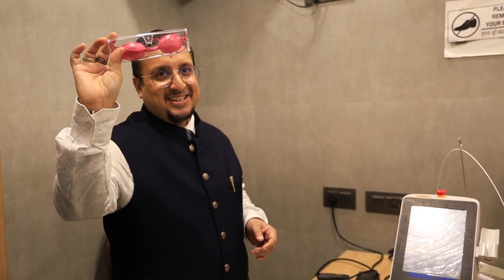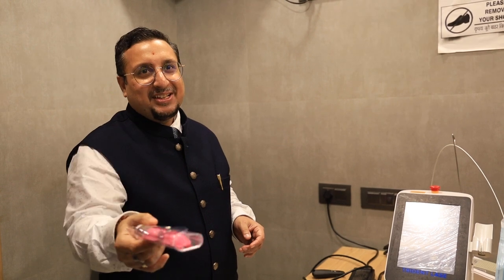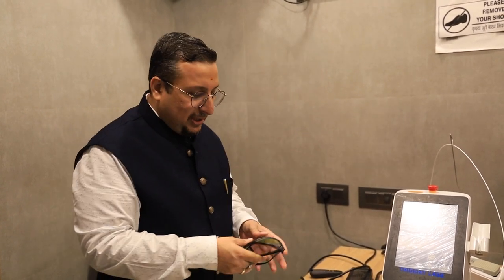Safety goggles — for patient, not for doctor. These are your goggles for doctors. And this is an eye cover for the patient.